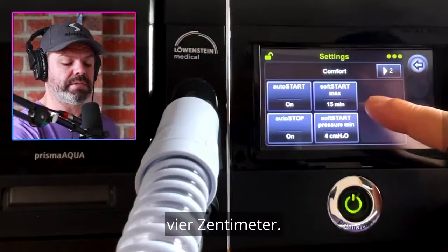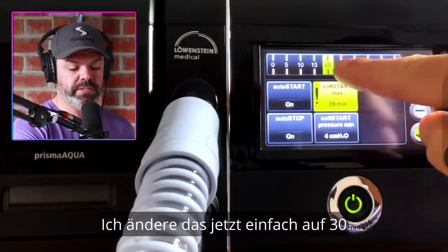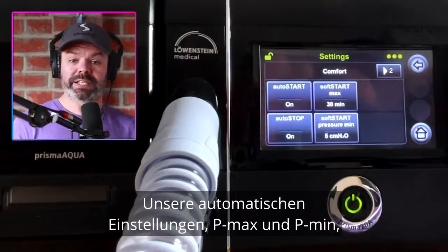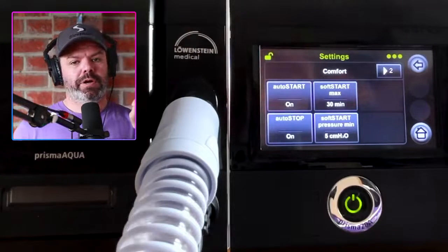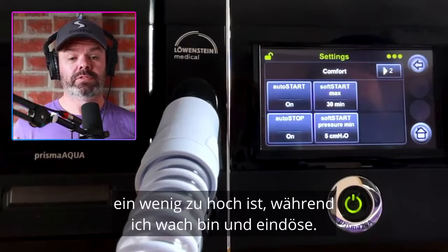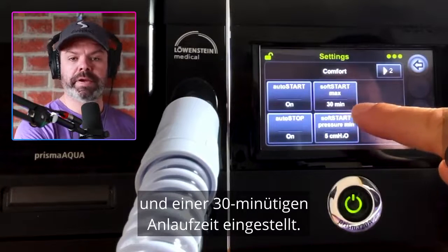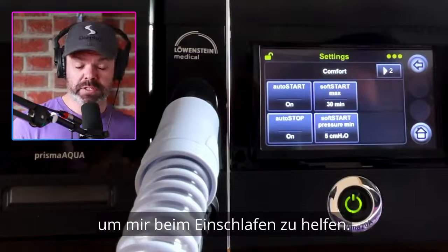Let's have a look at soft start max and soft start pressure min at 4 centimeters. Soft start max is like a ramp period. I'll change this to 30 and set the soft start pressure to 5. Our P max and P min were 16 and 10, so 10 was the lowest level. I might find when I hop into bed that 10 is a little too high while awake and drifting off. So we set a ramp period at a lower pressure while drifting off to sleep. The soft start pressure min at 5 centimeters with a 30-minute ramp period — it will start at 5 when I hop into bed and over 30 minutes gradually increase up to P min, up to 10, to help me get off to sleep.